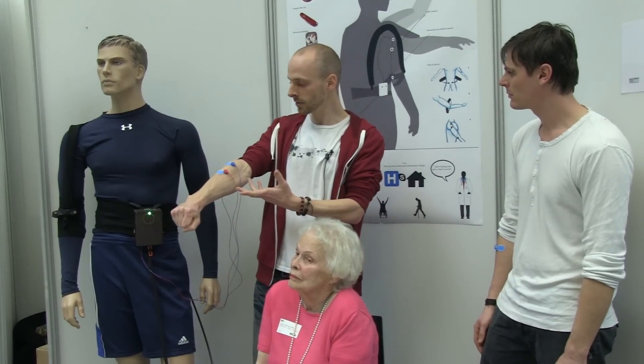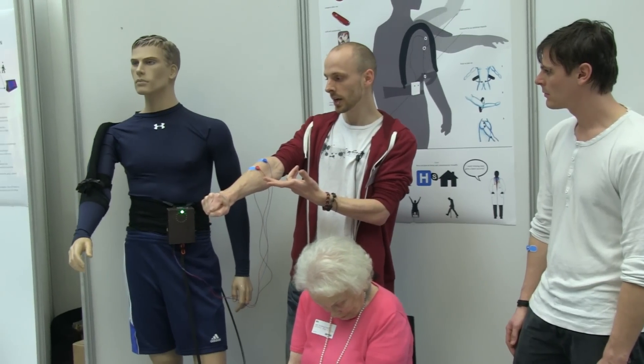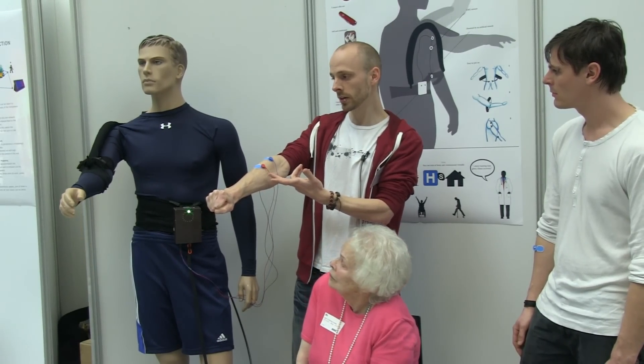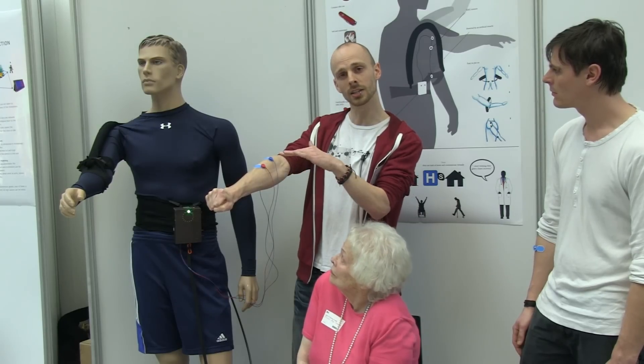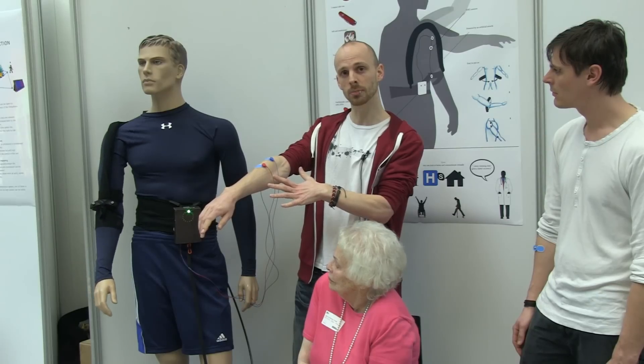So now I can just tighten the muscle. If I want to go up I tighten it like this. If I want to hold it, I do this — let loose a little bit. And then if I relax it completely, it lets the arm down.